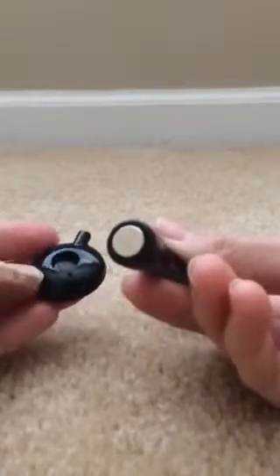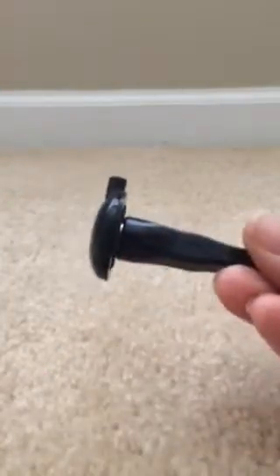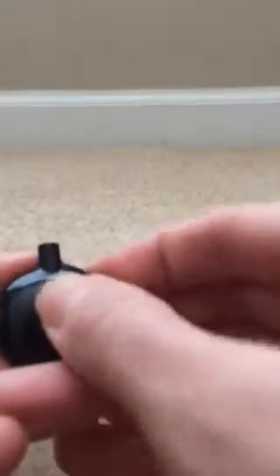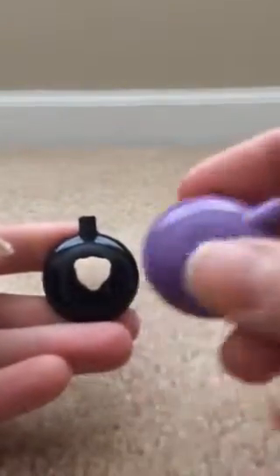There's a magnet on here and I put it behind it — it'll cling to it, and that puts the magnet where it's supposed to be so it goes on the head correctly. You can leave it like that while you handle the foam, then just push this back on and push down and it'll snap. Take that off — tada!